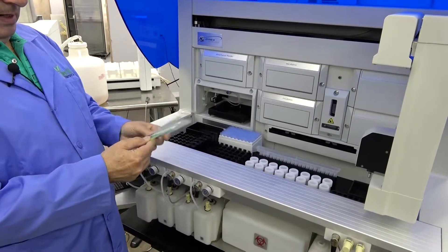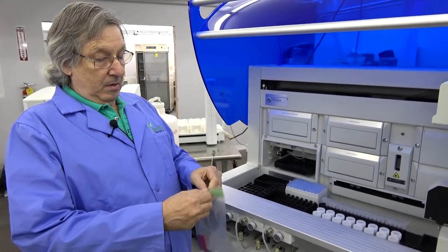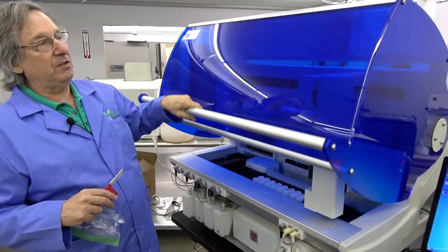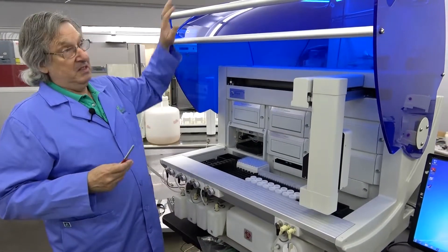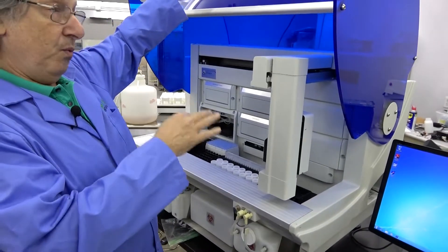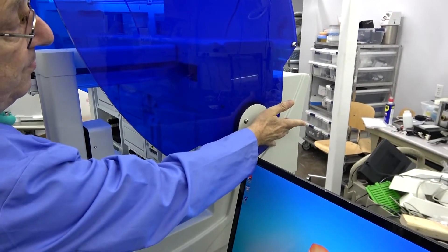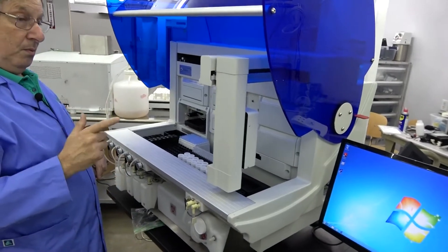An important item in my book is the door safety bypass key. These lids are very carefully balanced — they open effortlessly when they're done properly, when the air shocks are in good shape. When they get older, not so much. It's a good safety device and it allows you to run the system, especially in the testing stage, with the door open. It simply slides into the hole there, and now this unit's lid can't come down — it turns the bypass safety switch off.